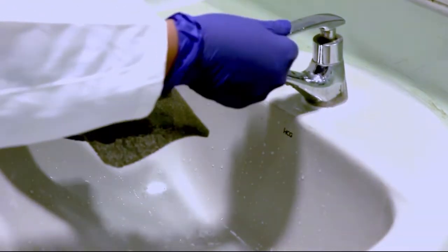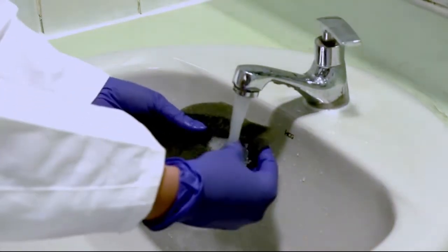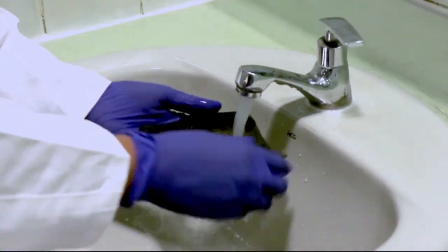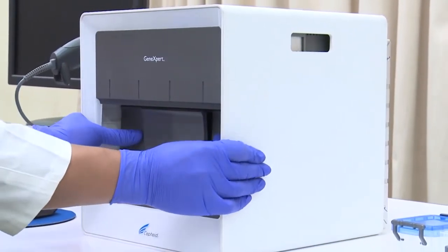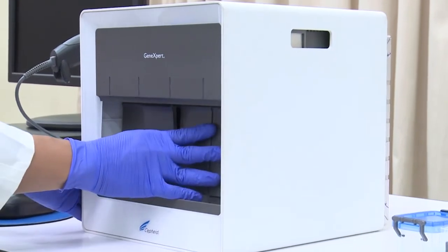Remove the fan filter and wash it. Let it dry completely before reassembling. Then push from the front of the machine to the back as shown and remove the outer cover.